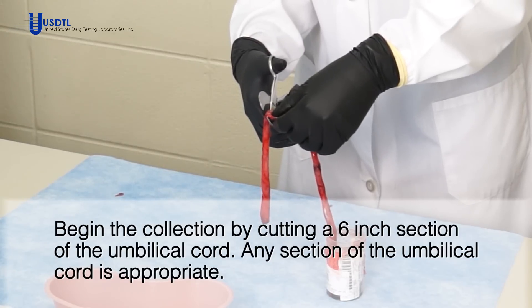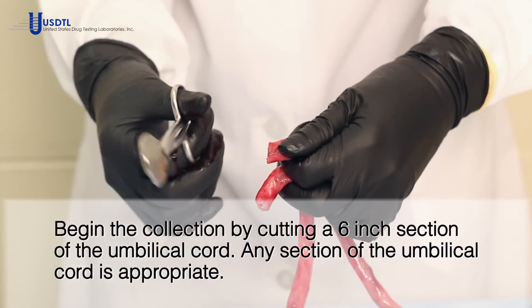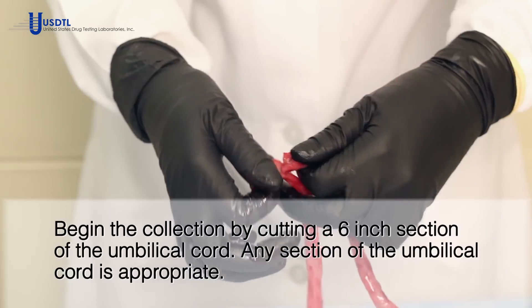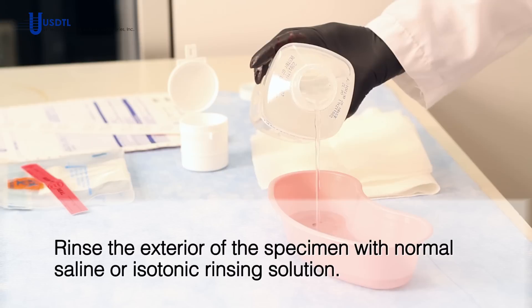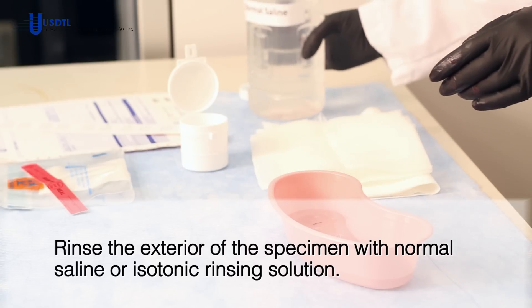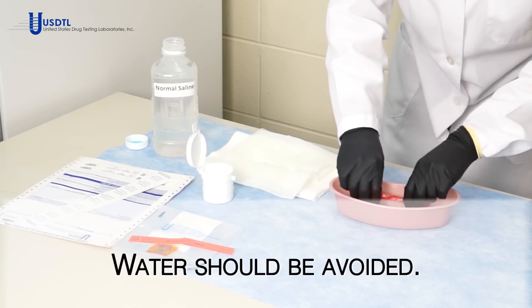Begin the collection by cutting a six inch section of the umbilical cord. Any section of the umbilical cord is appropriate. Pinch the specimen between the finger and thumb, then run your fingers down the specimen three to four times to drain excess blood. Discard any excess blood. Rinse the exterior of the specimen with normal saline or isotonic rinsing solution. Water should be avoided.